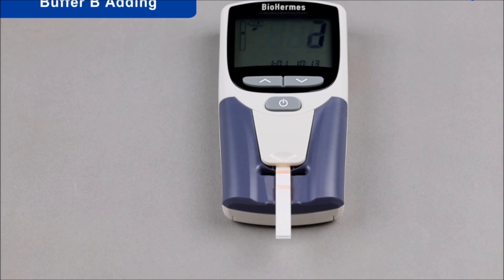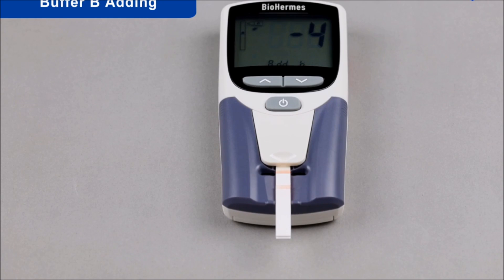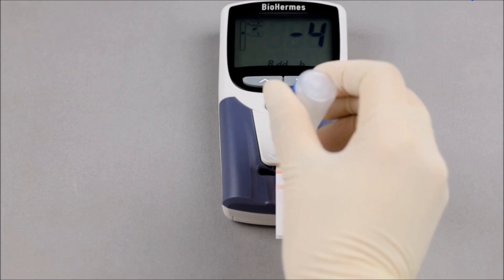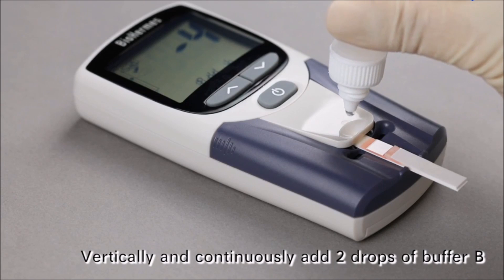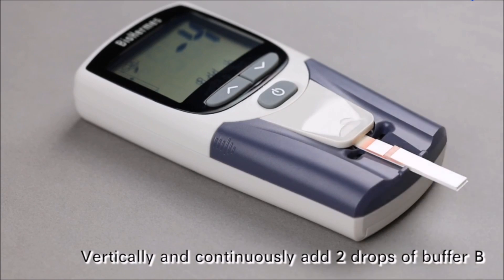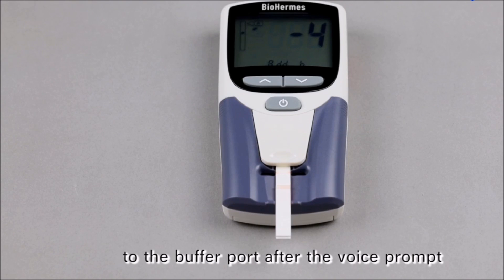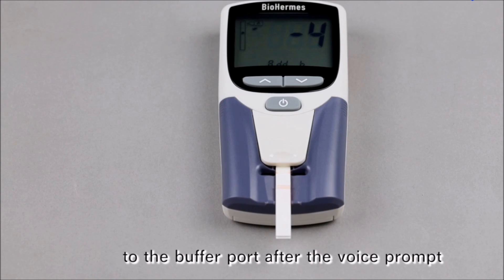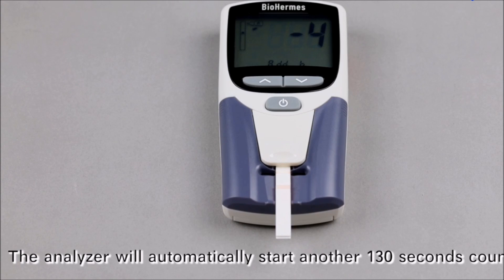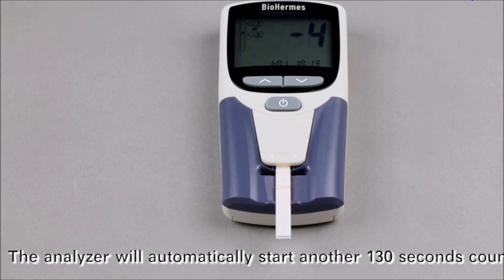Buffer B Adding: Please add 2 drops of buffer B. Vertically and continuously, add 2 drops of buffer B to the buffer port after the voice prompt. The analyzer will automatically start another 130-second countdown.